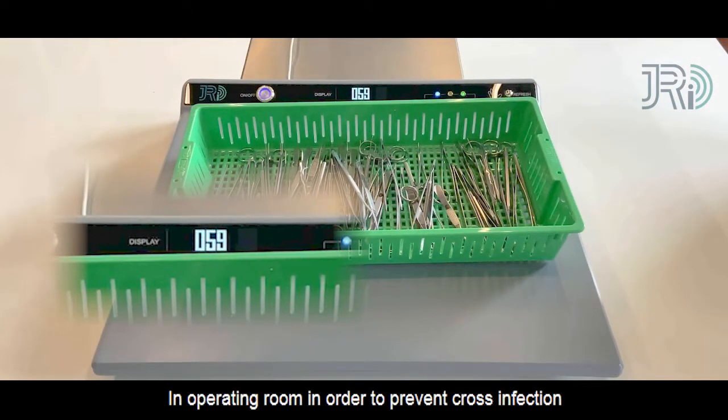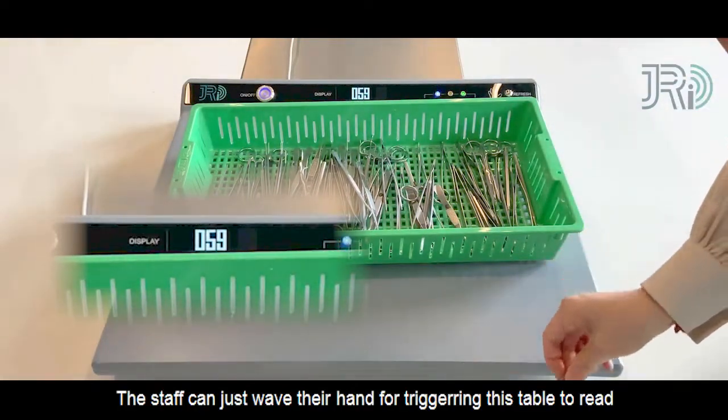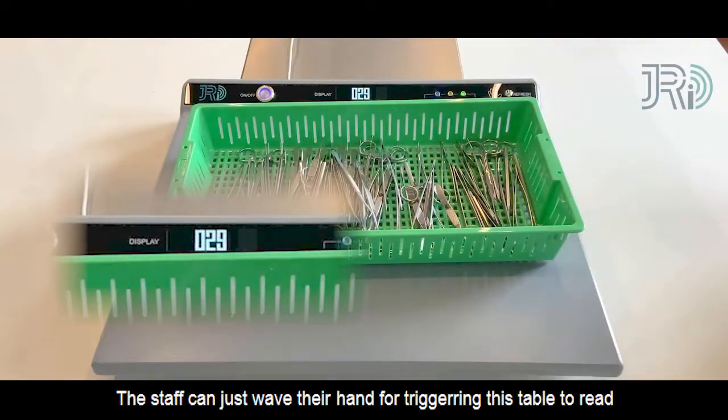In operating room, in order to prevent cross-infection, the staff can just wave their hand for triggering this table to read.